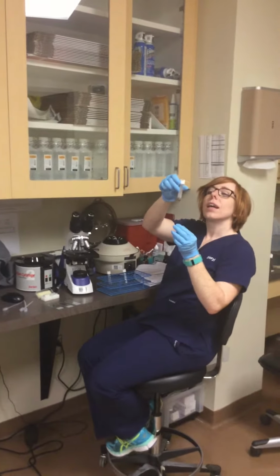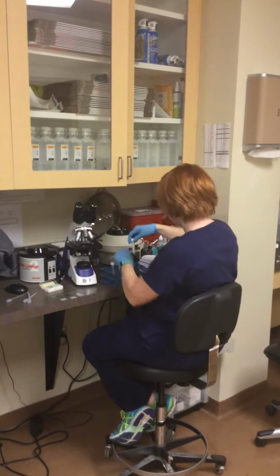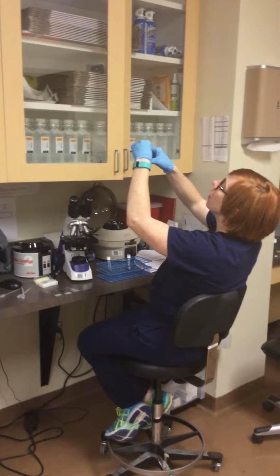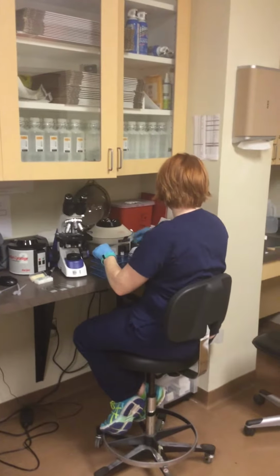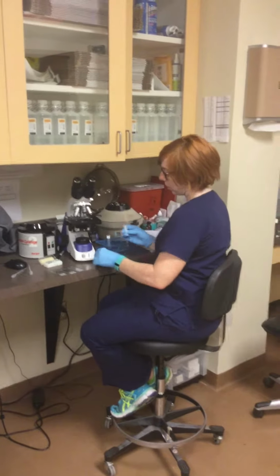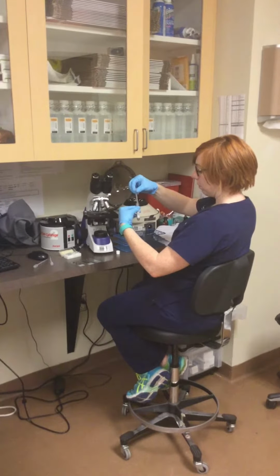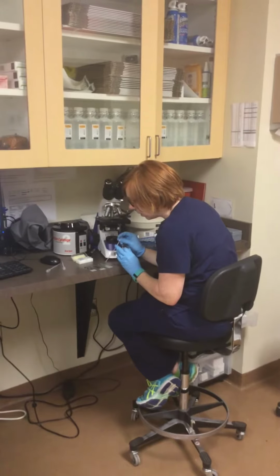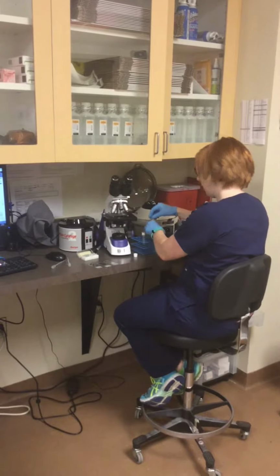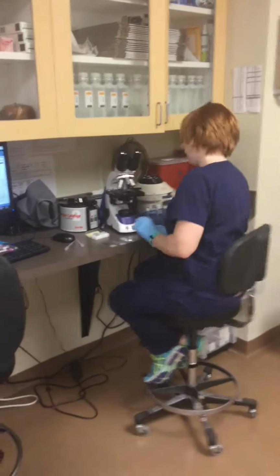So I actually see hemolysis on the major cross match and none on the minor. So what I'll do next is I will resuspend the cells and look for micro and macro agglutination. So the first one I'll do is the minor. I'll place one drop on here. And I will put the cover slip on it. And I will look under the microscope.